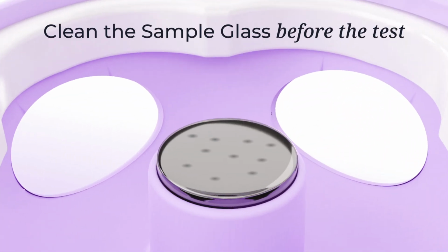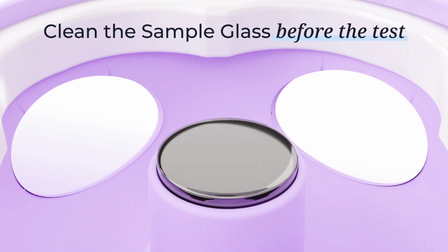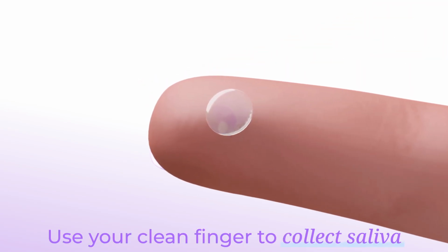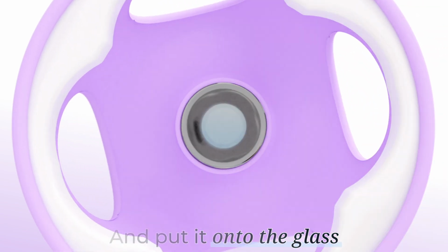Before each use, clean the sample glass on the bottom part of the analyzer with a cleaning cloth to remove dust. Use your clean finger to collect a small amount of saliva from under your tongue, and put it onto the glass, closer to the center of the sample glass, and avoid bubbles.